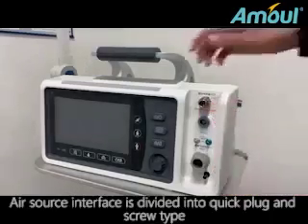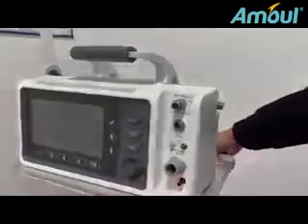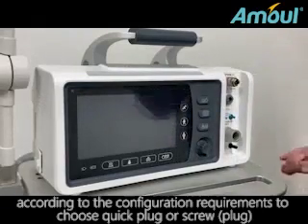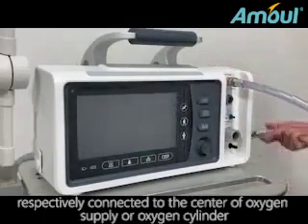Air source interface is divided into quick plug and screw type. According to the configuration requirements, choose quick plug or screw plug, respectively connected to the center of oxygen supply or oxygen cylinder.